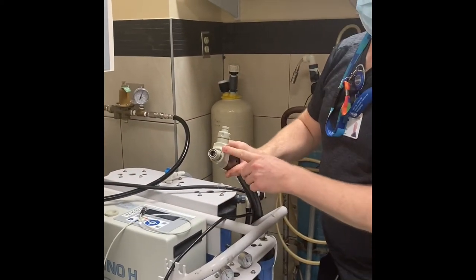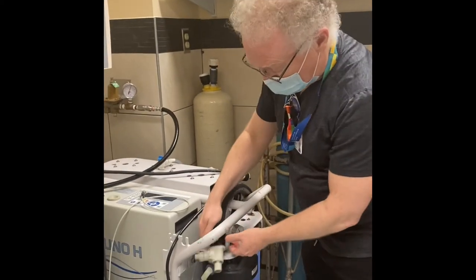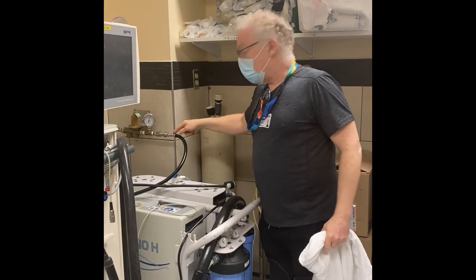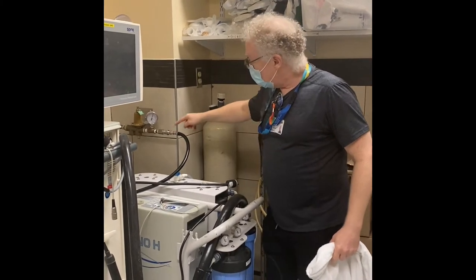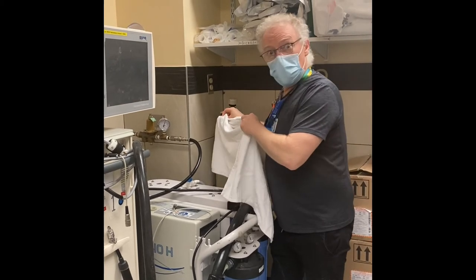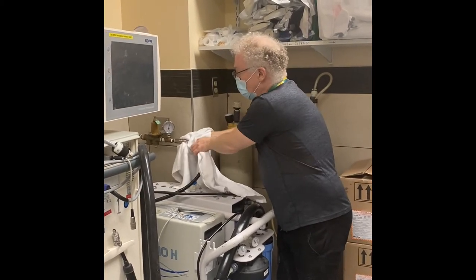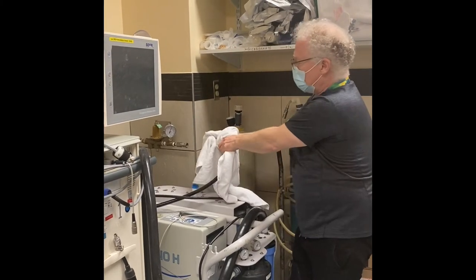This is also your water inlet supply and must be kept off the ground. To disconnect the water supply to the Aqua Uno, use the quick connect collar here. It may spray water, so use a towel. Pull the collar towards you and it will disconnect.